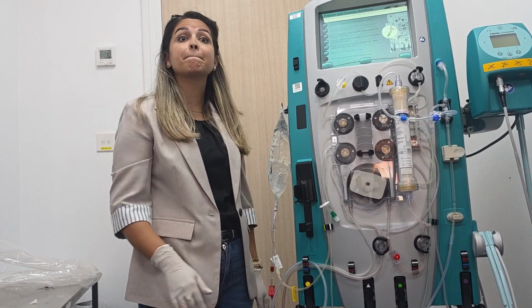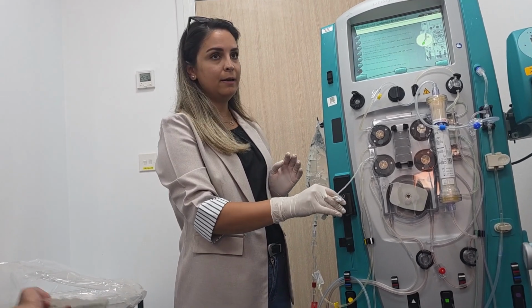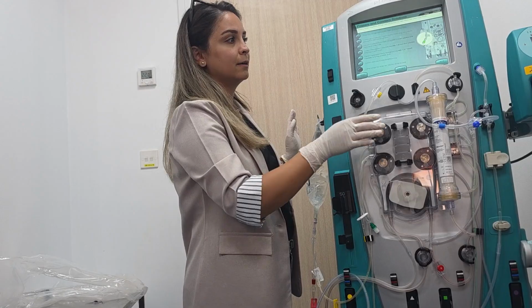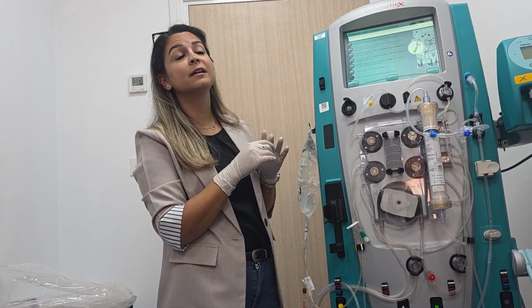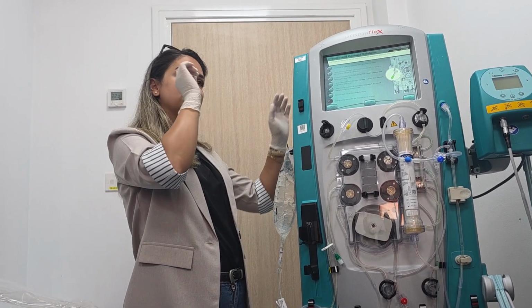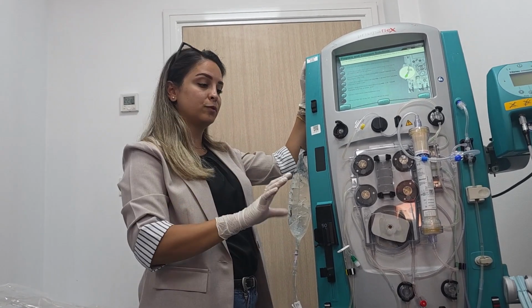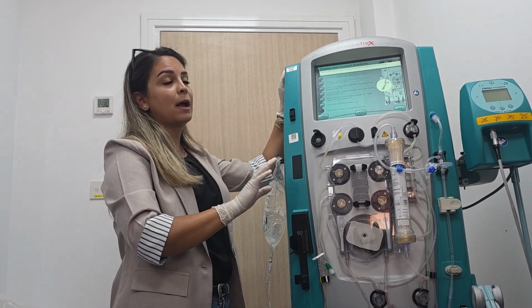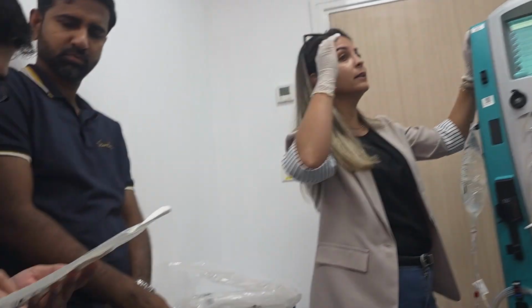But we will connect now. Use this line, this is just for heparin. Later we will connect. We are not using that one, right? 200 ml. But when we press that, it asks which syringe we use, right? Yes, so we choose the first option, citrate Prismaflex syringe pump. So we'll use this pump, and here we will put the syringe. We will connect it to this line directly to the patient.